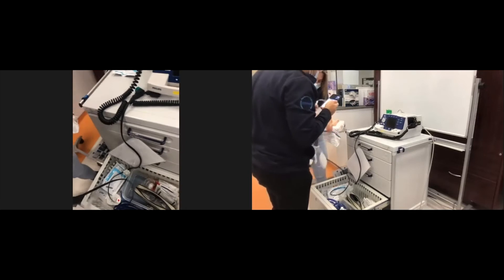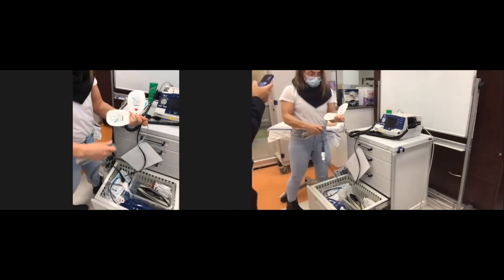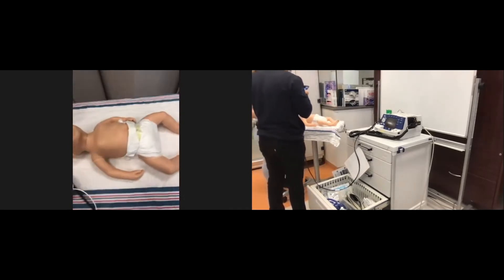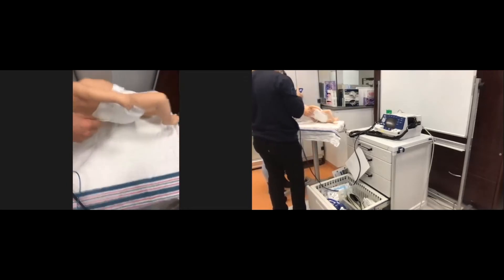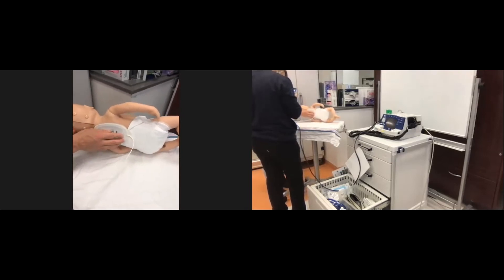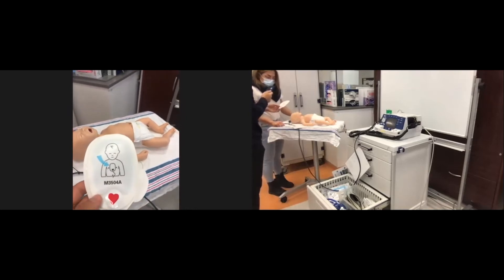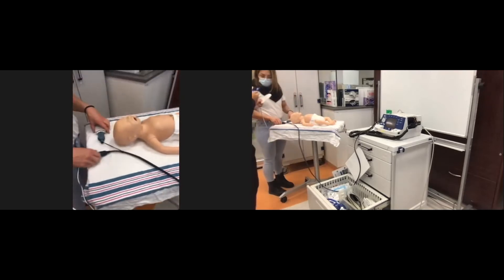Once the cable is connected, your two pads are now connected to the machine. The pads will tell you exactly where to place them — one goes on top of the chest and one goes to the back. You want to avoid having them touching each other, especially in smaller babies, since electricity could pass from one pad to another without passing through the baby.